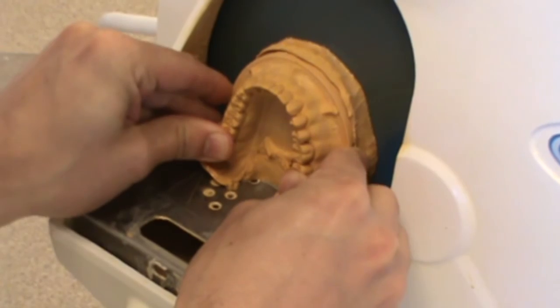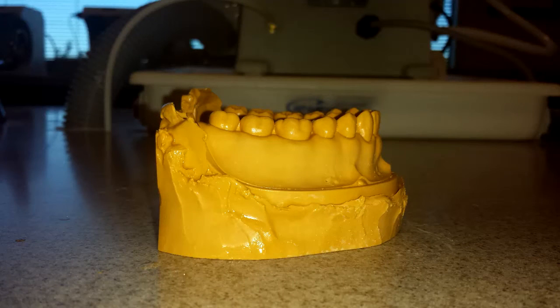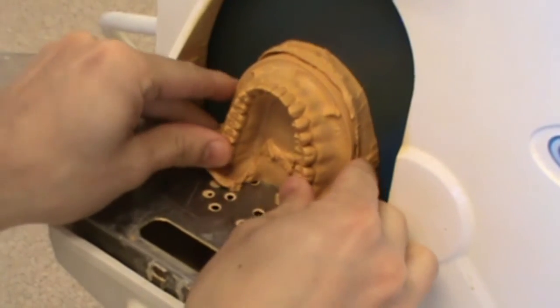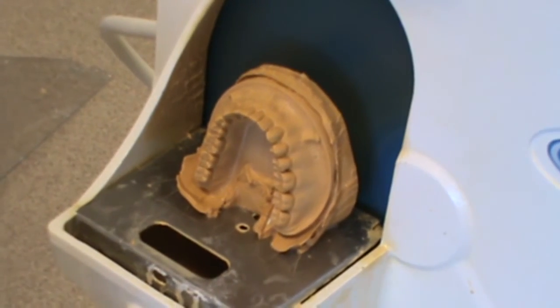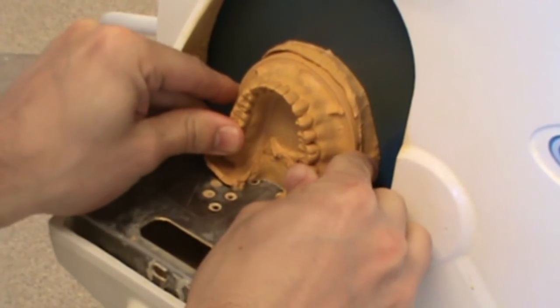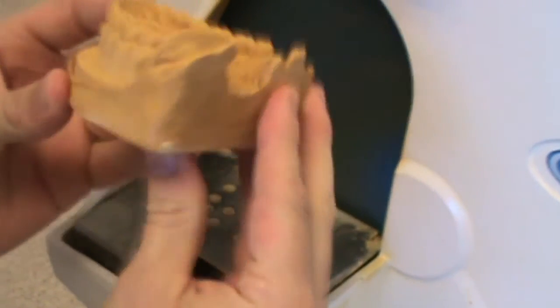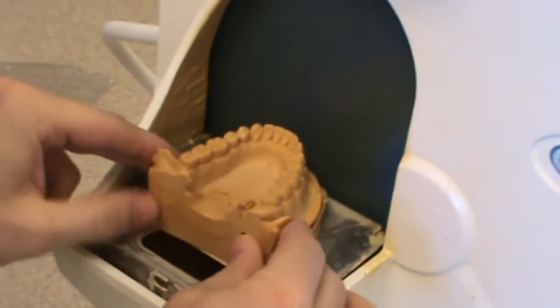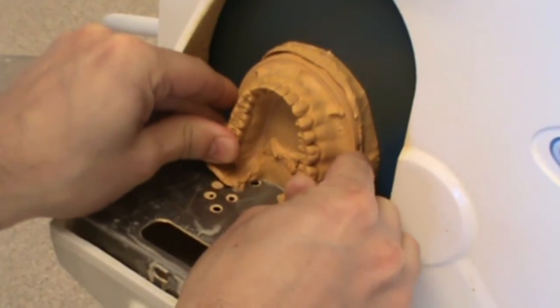I'm constantly taking off and looking to make sure I can see how I'm trimming, what I'm doing with every step, and where pressure needs to be applied. I'm going to verify that I have this where I'd like it. Looking from the side, the bottom is totally flat, the occlusal plane is relatively flat — I may need to adjust that just a little bit both from the anterior and the side. The cast is still too thick, and I have a little bump going to the posterior in the lingual area, so it's thicker as it goes posteriorly. I want the thinnest area — more to the anterior of that lingual — to be about 15mm thick.